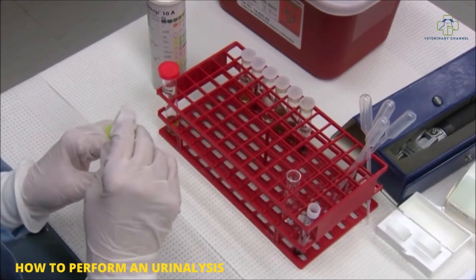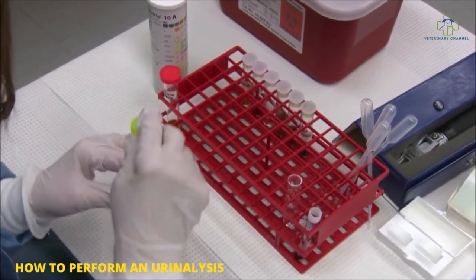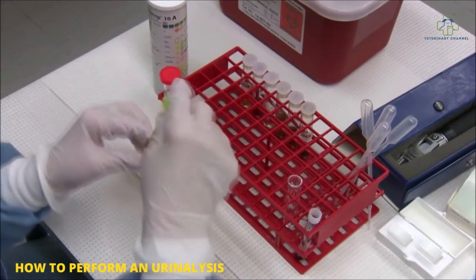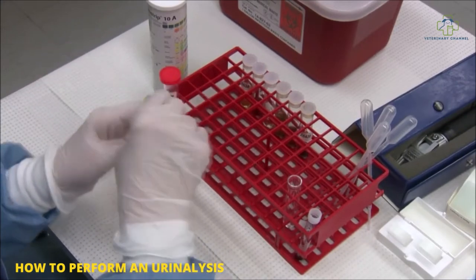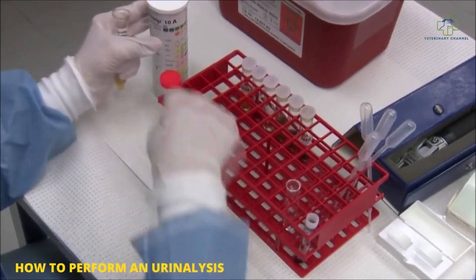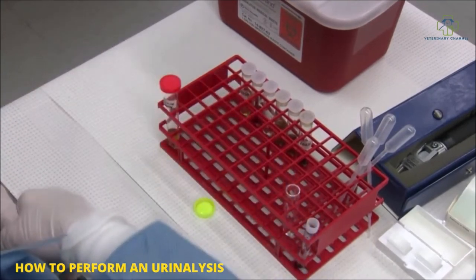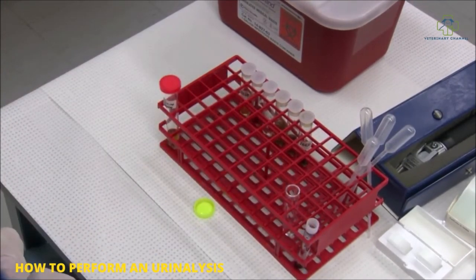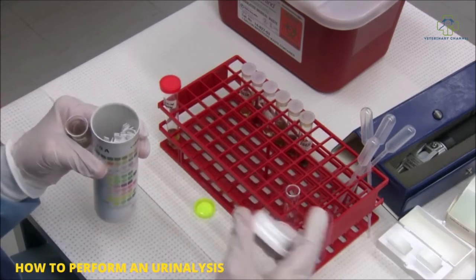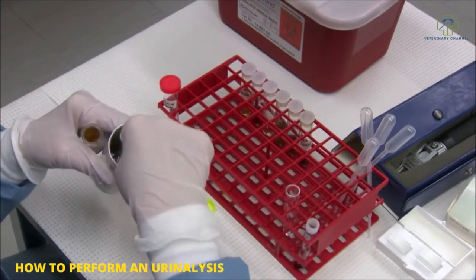To start a urinalysis, you want to gently mix your urine. You don't want to shake it. Take one of your urine strips. These strip containers have a desiccant in the lid which keeps your strips dry, so as soon as you remove a strip, you want to put this lid back on.